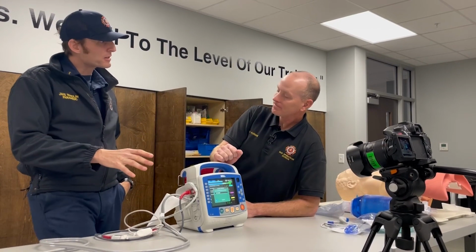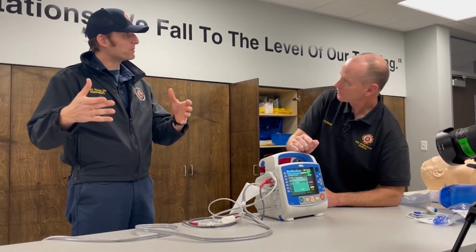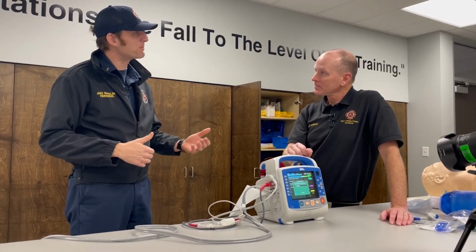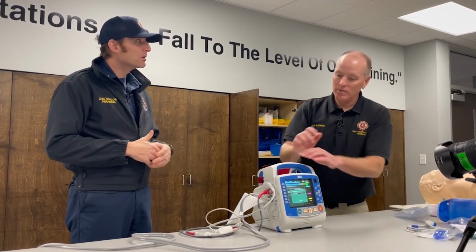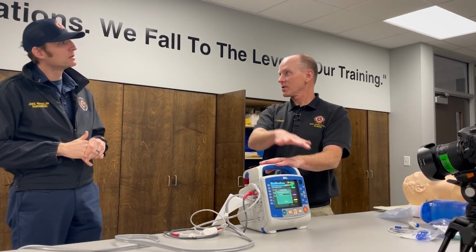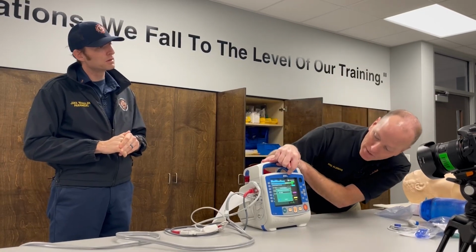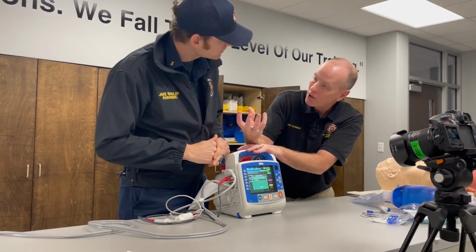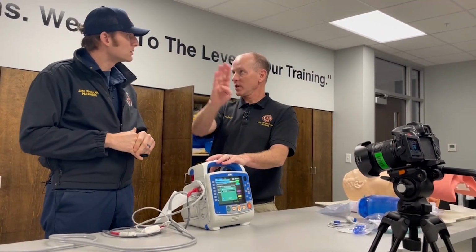So as far as transmitting this, is there any issues for us, like, let's just say we're in the house. Can we transmit it from the house, from the BLS, because we are getting new monitors on the BLS trucks. Correct. Does it have the same capability as, say, the Rescue that's already at ALS has had it for forever? So my understanding is that these would be bounced off of the actual engine's Cobb hotspot. Okay. So when you click that button on and you say, I'm going to transmit, and we'll show you on the home screen, your little arrow will come up, it'll turn green, and you'll just say, I want to go to Kennestone. And you click the button and it's transmitting to Kennestone.